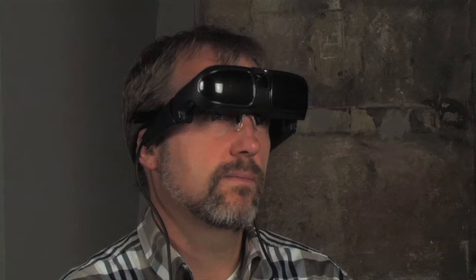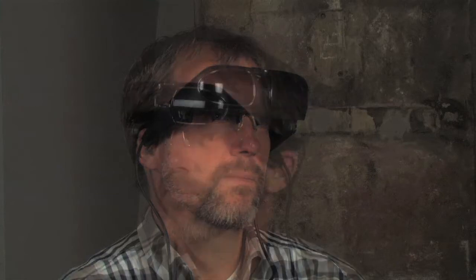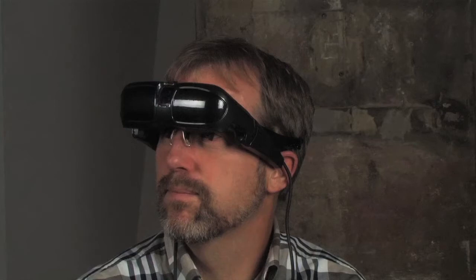A video camera and a TI DaVinci processor are used to capture images, process the images at video rates, and then display them just in front of the person's eyes.